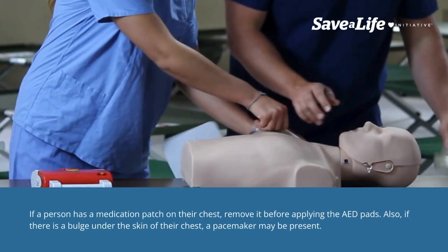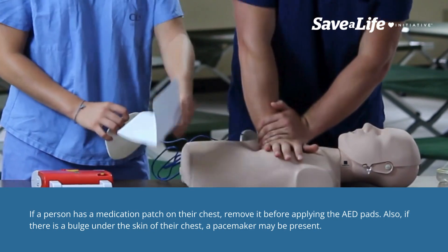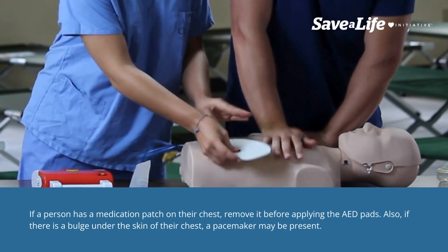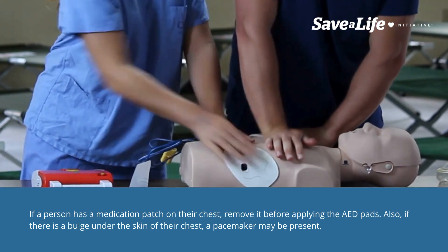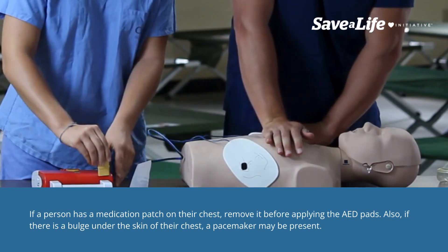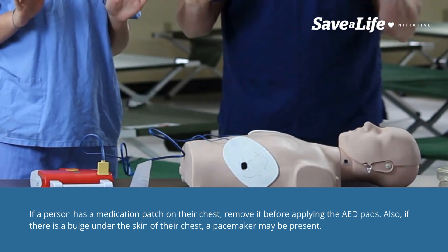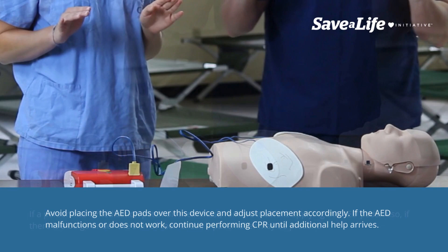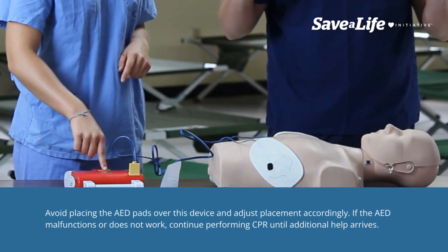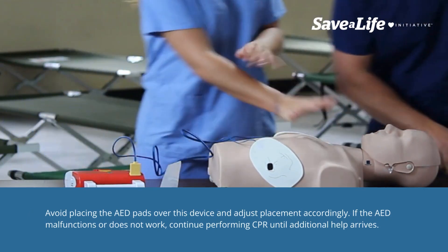If a person has a medication patch on their chest, remove it before applying the AED pads. Also, if there is a bulge under the skin of their chest, a pacemaker may be present. Avoid placing the AED pads over this device and adjust placement accordingly.